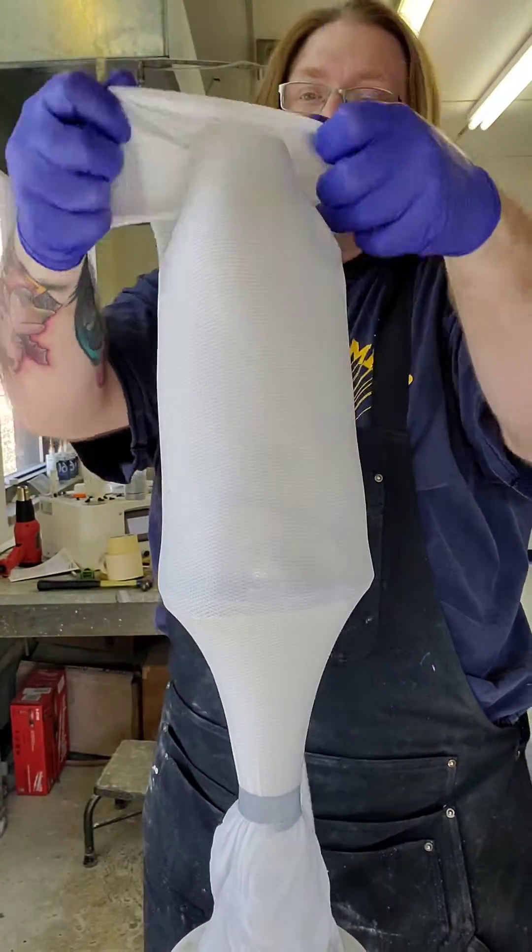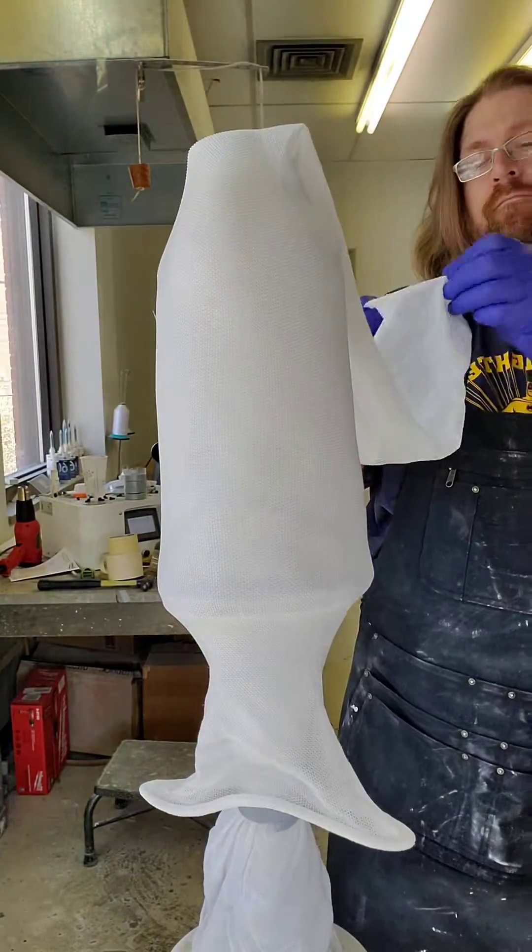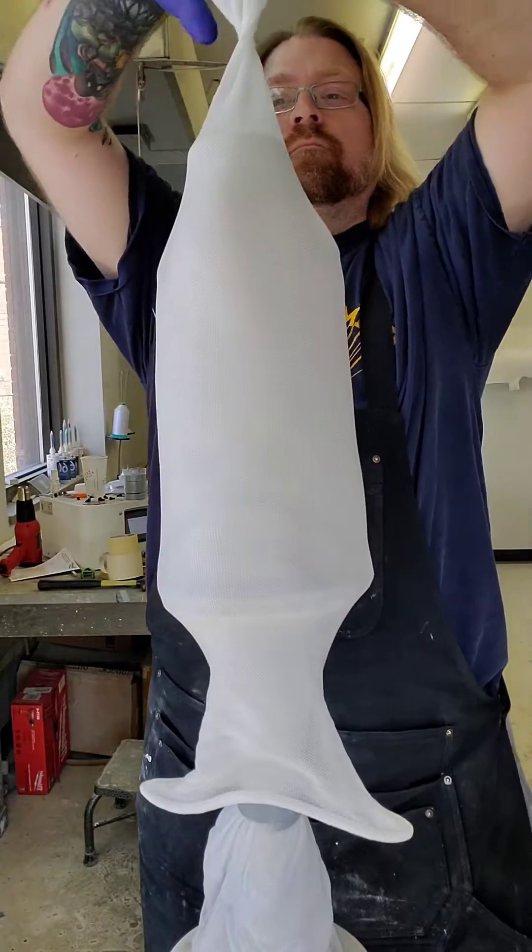After that I'll start out with two layers of nyglass. I twist and reflect most everything, but I don't do a hard twist. I still want the resin to be able to penetrate the knot at the top.